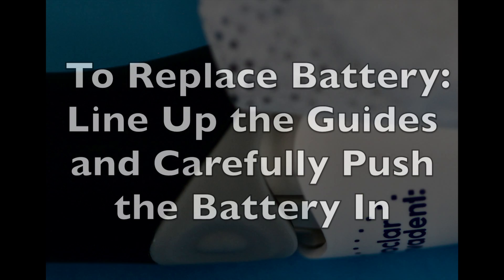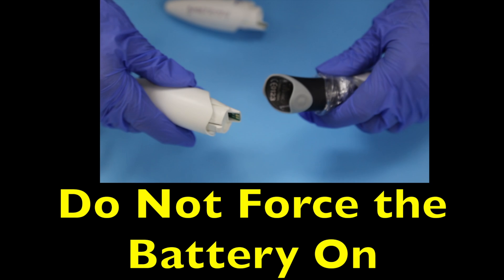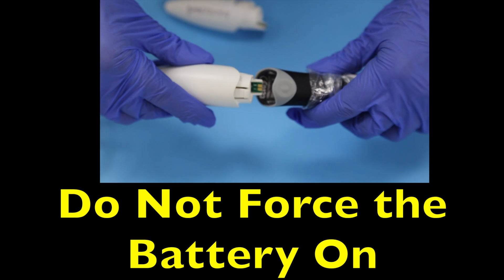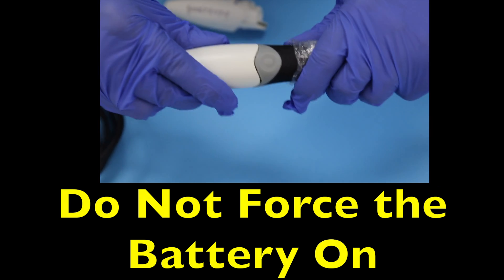When replacing the battery, don't force it on. Just line up the guides on the side like this. Identify them. Make sure you're putting it on the right way around. And it just clicks into place.